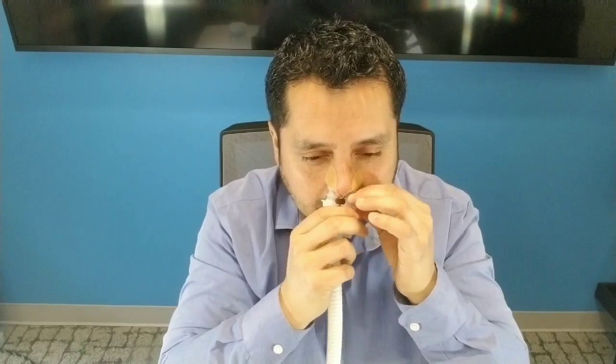Just gives you a little idea making sure that these are on properly. Getting set up, I'm going to hook up to a CPAP machine that I've set to 15 — that's pretty high. And I'm going to pull on the tube so you can see that there's nothing that's going to shift around and cause any leaks. So here's the CPAP hose. Let's turn on this machine.